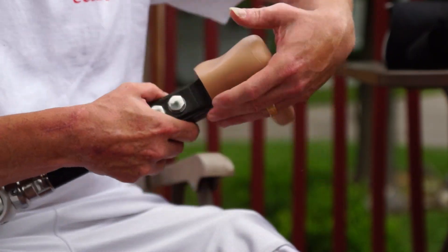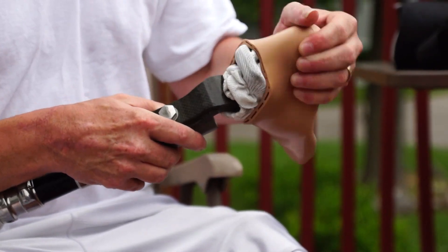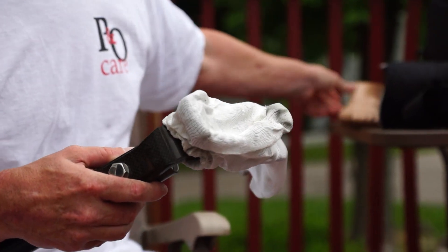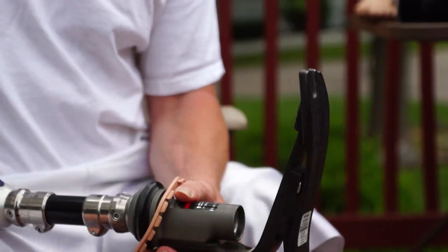So you can see my lovely foot — just take the top ring off and go to the back of the heel and it should come right off. Under that is my little nylon sock, and that is what my foot looks like.